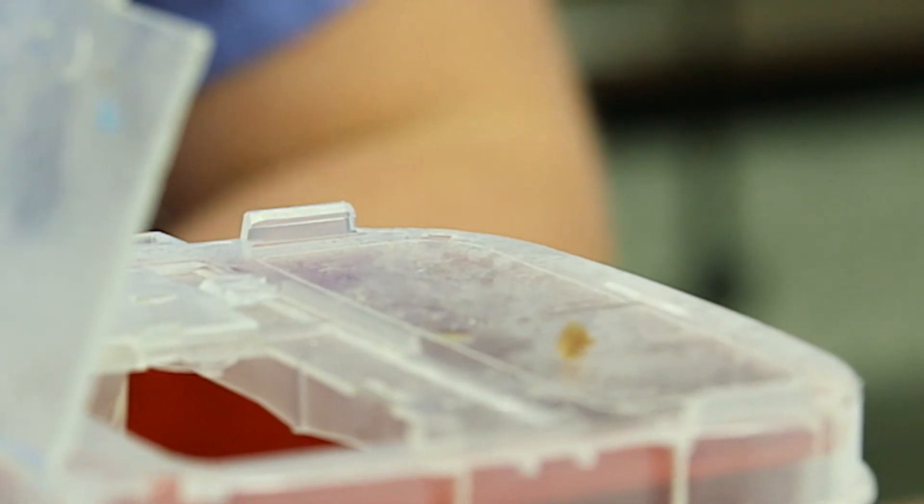Whenever you are removing the scalpel, always keep your hands away from the blade. This is how many injuries occur.